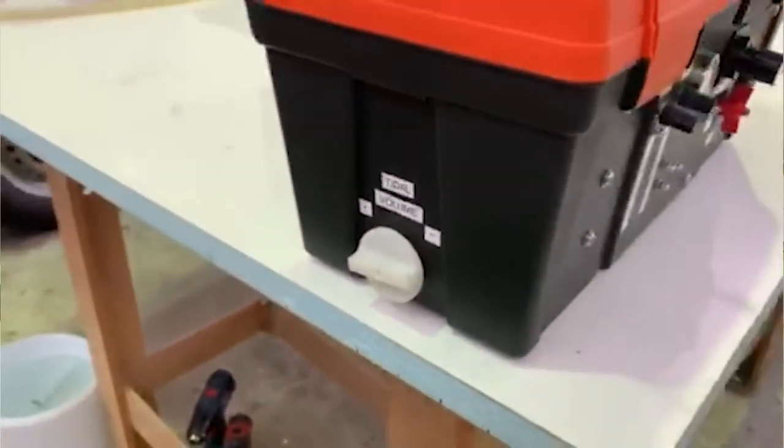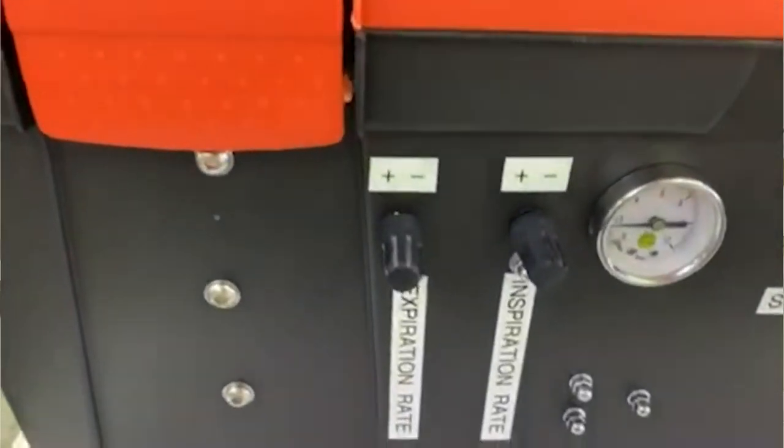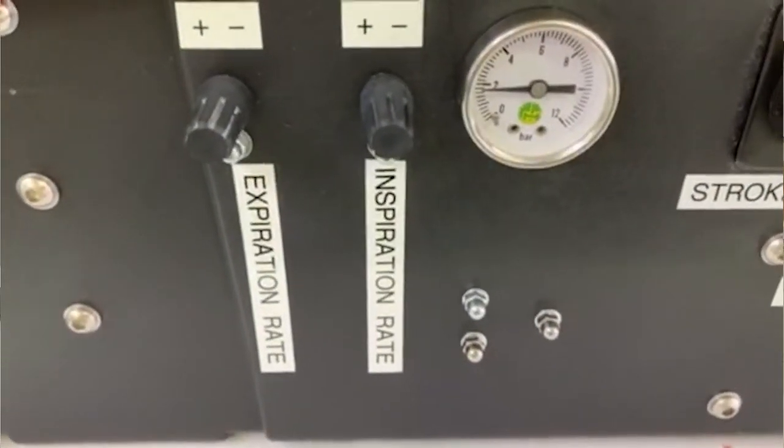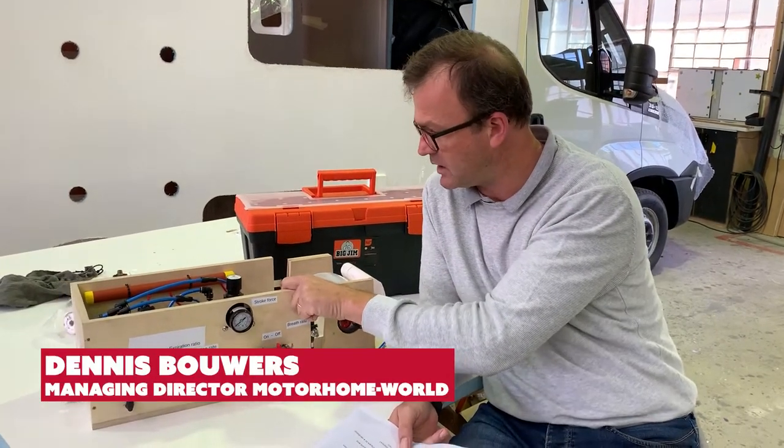Due to the current emergency situation, we've decided to repurpose some of our machines and expertise to come up with a device to help medical personnel.